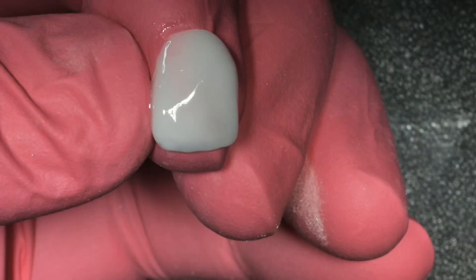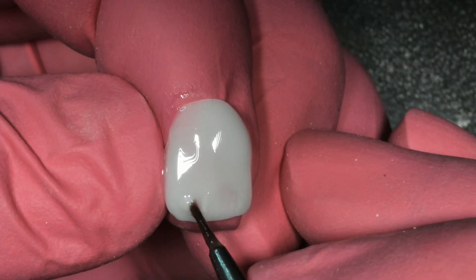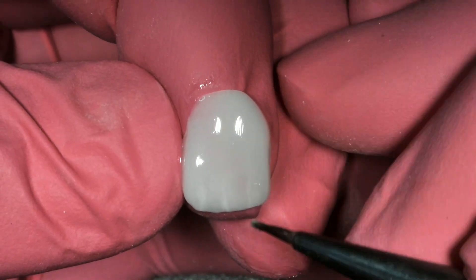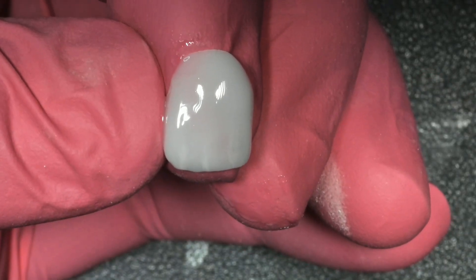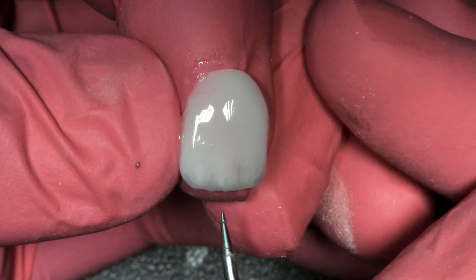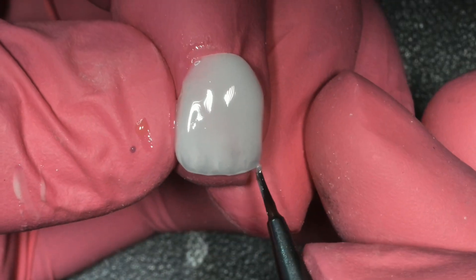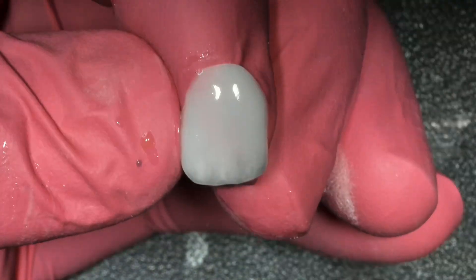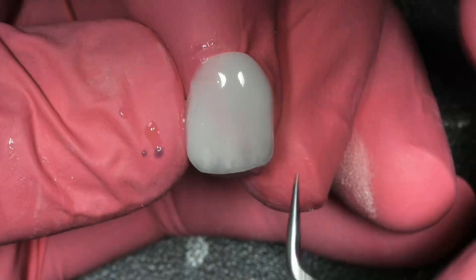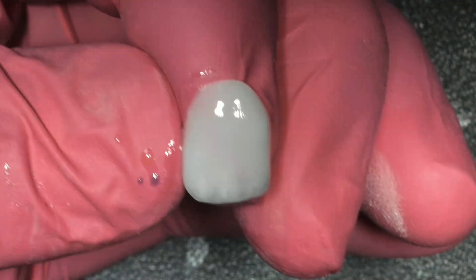The goal here is not to use any glazes or anything on the surface that would chip or peel off over time. This is unadulterated liquid resin — the biocompatible resin that we printed with — and we're going to interdiffuse some colors and tints into this. Here we're using some translucency color. Ivoclar's resin colors are some of the best on the market — they have the perfect consistency. We're going to create a little halo on the very edge, then make sure we have an equal coating of liquid resin everywhere. To add surface texture back into this coating, we use a sharp instrument like a hummingbird beak or a brooch to add horizontal and vertical lines, then freeze that with the light.